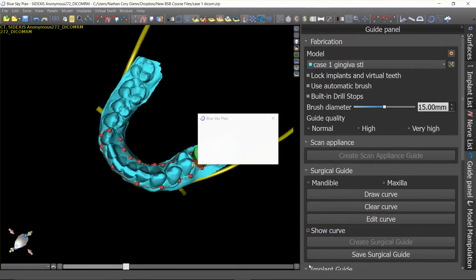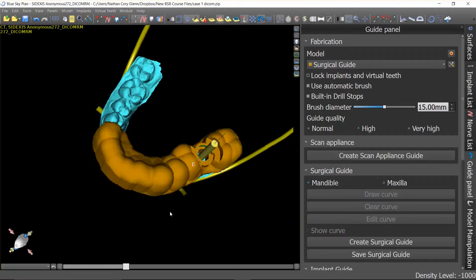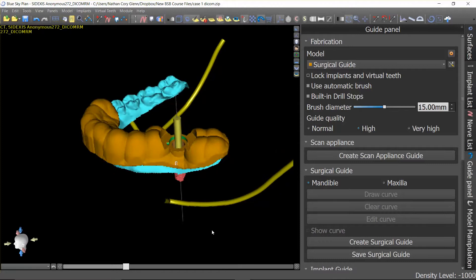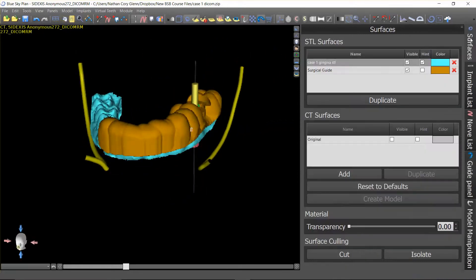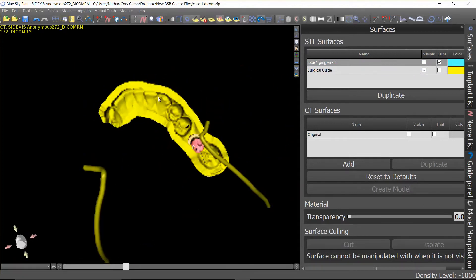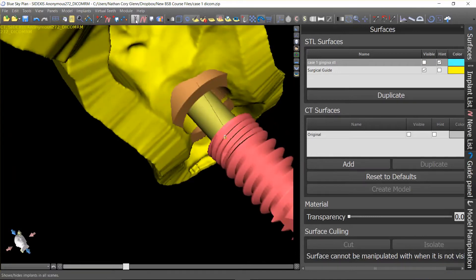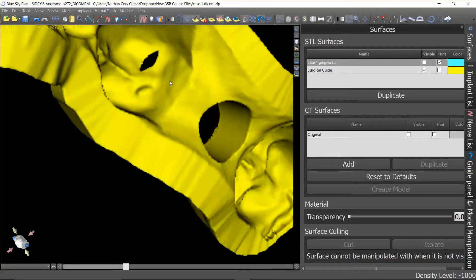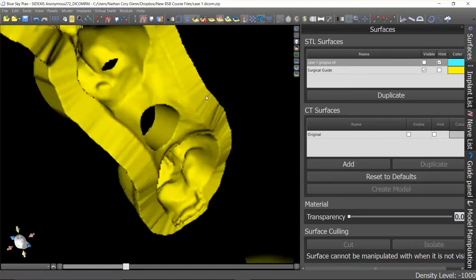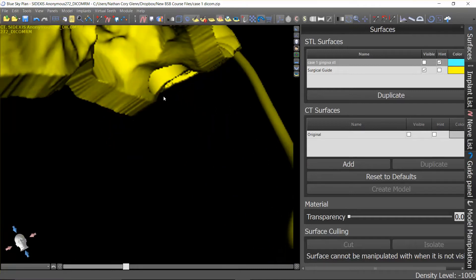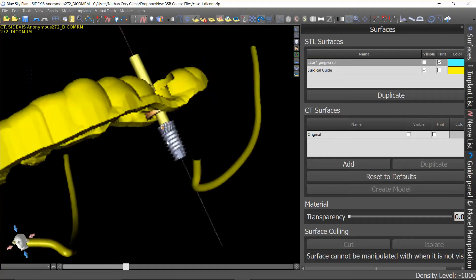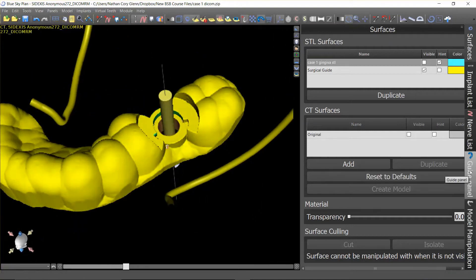When I push save, the software begins fabricating the guide. The guide will show up as another surface in the STL surfaces panel — you can change colors, turn on the hint, or toggle visibility. Let's turn off the visibility of the gingival model so we can see this surgical guide in its entirety. If you remember we had that little area where the tube was impinging into the gum — if I turn off all implant visibility you'll notice that the actual guide is not impinging, because the software knows it can't impinge into tissue and blocks out that portion of the guide tube accordingly.